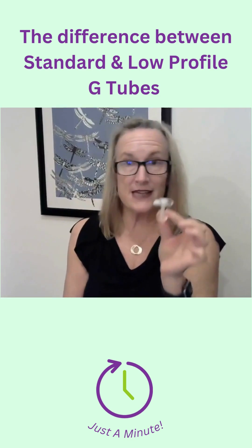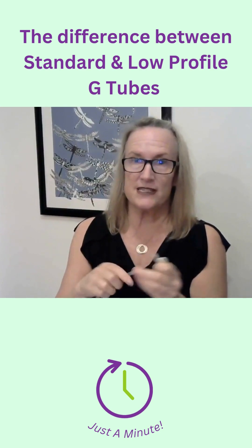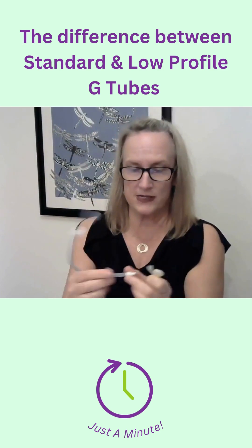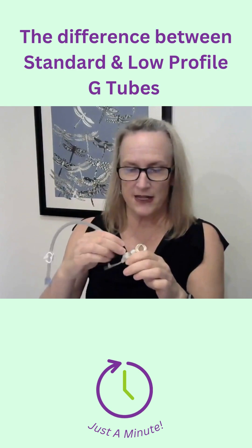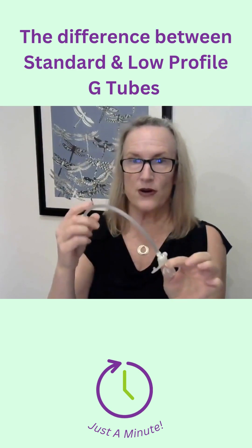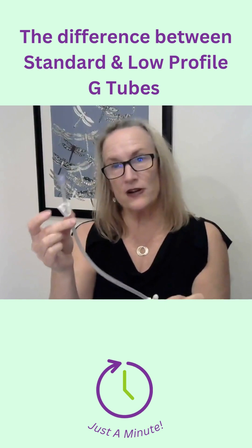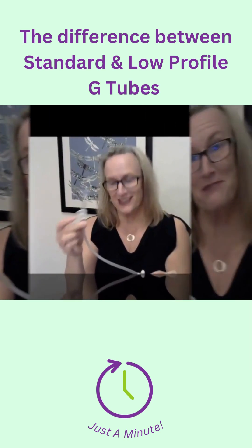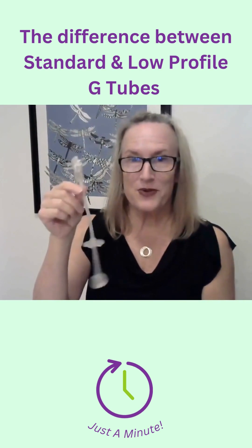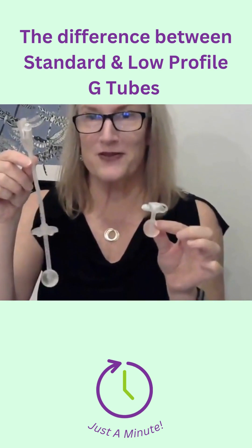Now when it's time to feed, you need an extension set with low profile devices. This is a bolus extension set that you would plug into the feeding port, and this is where you would access for feeding time. So that is the main difference between a standard profile tube and a low profile tube.